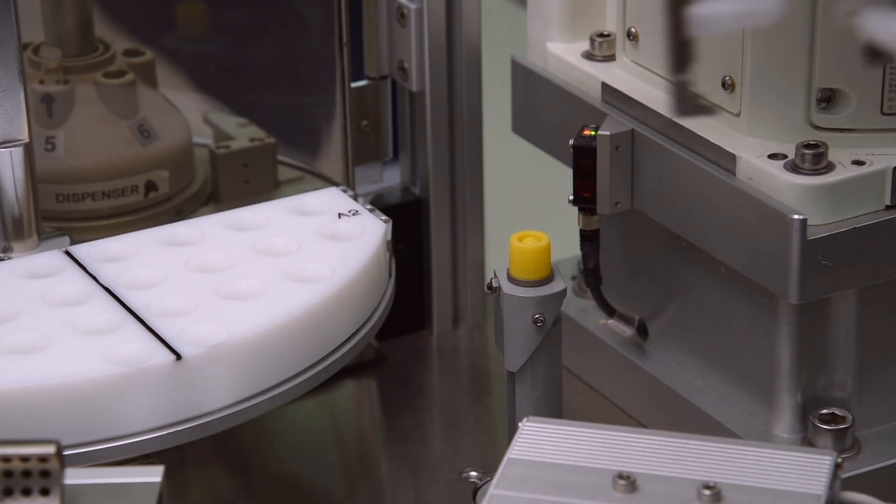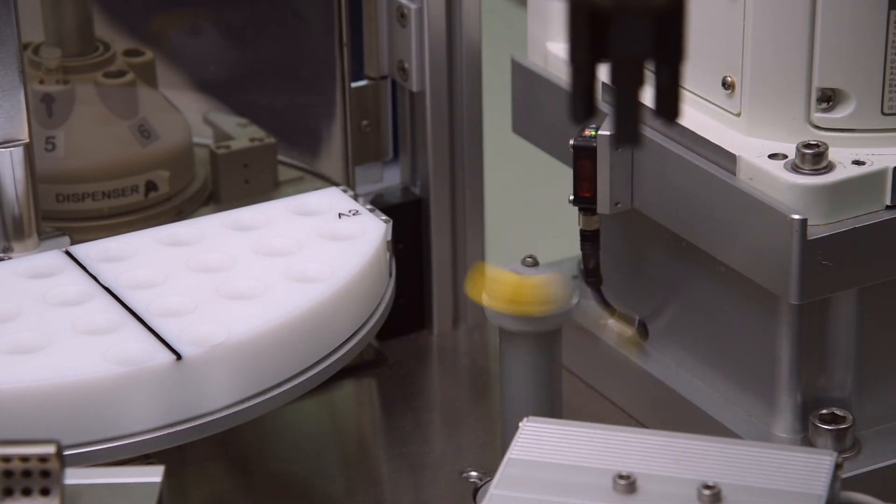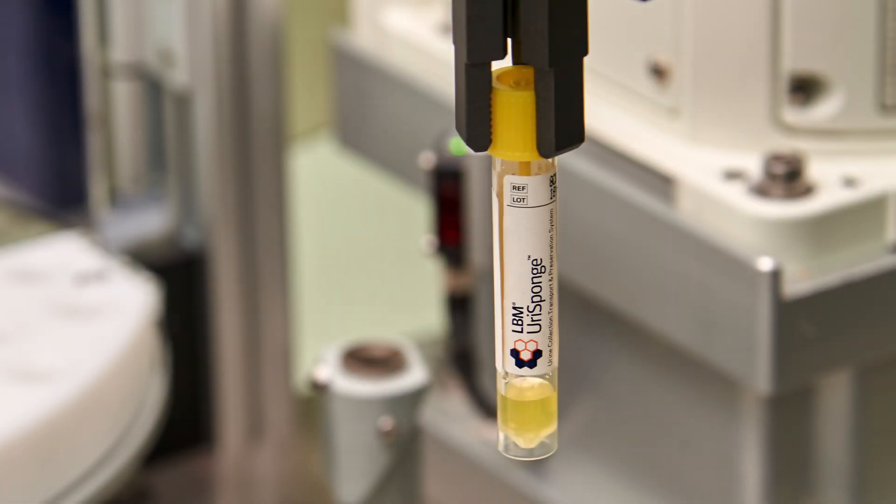When processed on the WASP automated specimen processor, the built-in spinner will automatically rotate the samples to release the urine.